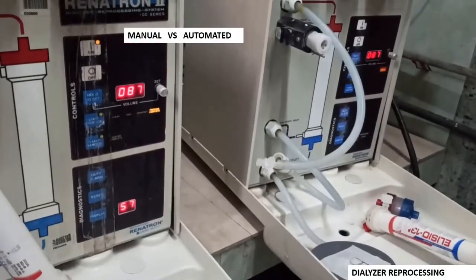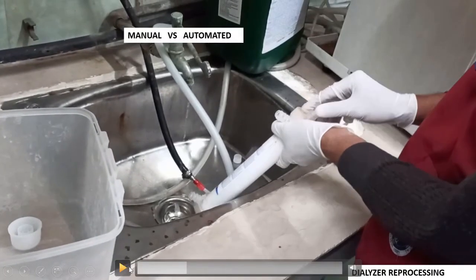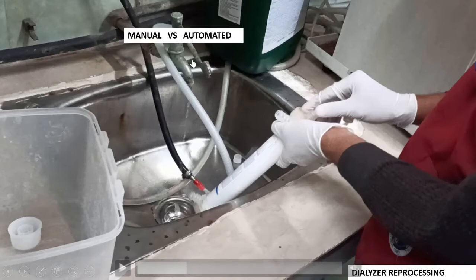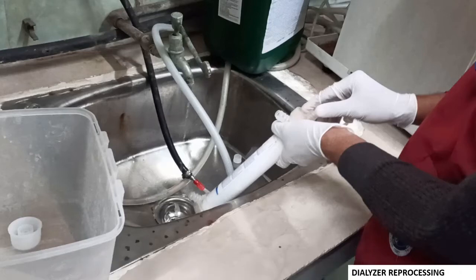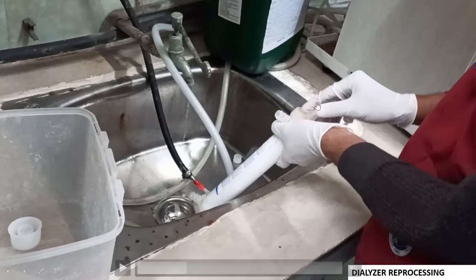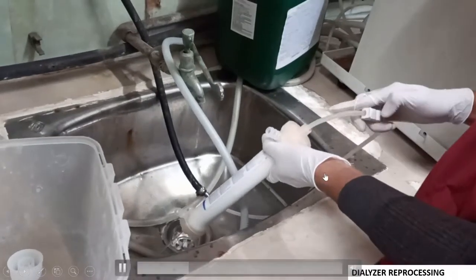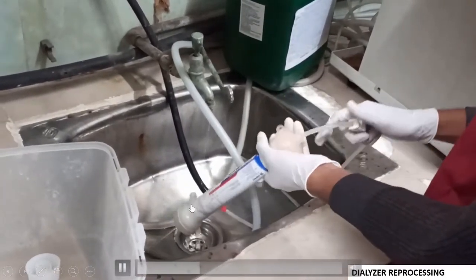There are two machines in our unit. After the termination of dialysis, rinsing has been done and the dialyser has been taken to the reprocessing area. The water used here is RO water supply — not usual tap water — but water cleaned through multiple processes. After dialysis is over, we are going to flush through the blood compartment so that whatever clots remain will be dislodged and come out of the dialyser.